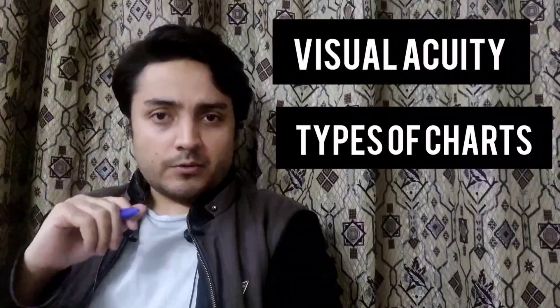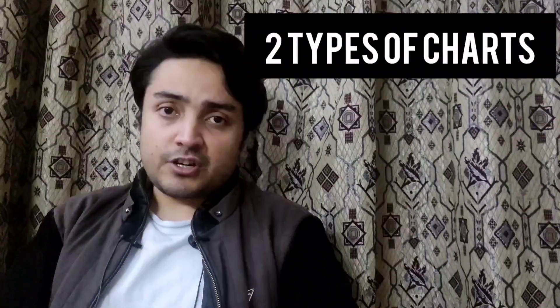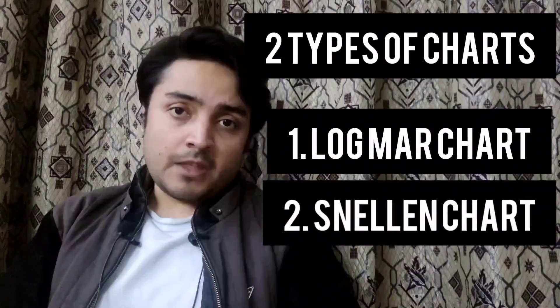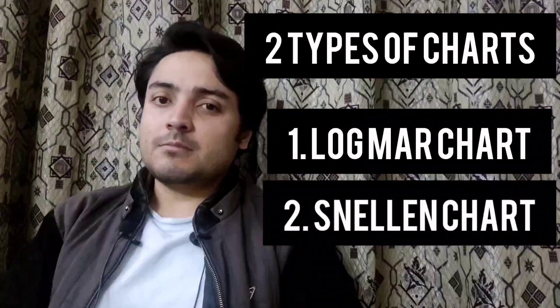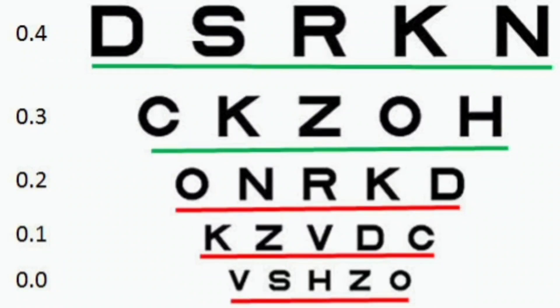Welcome back to my YouTube channel. Today we are going to discuss visual acuity and the charts that are used worldwide to measure the vision of an individual. There are two standard charts: the LogMAR chart and the Snellen chart. The LogMAR chart measurements are a bit more complex and will be discussed in a separate video.